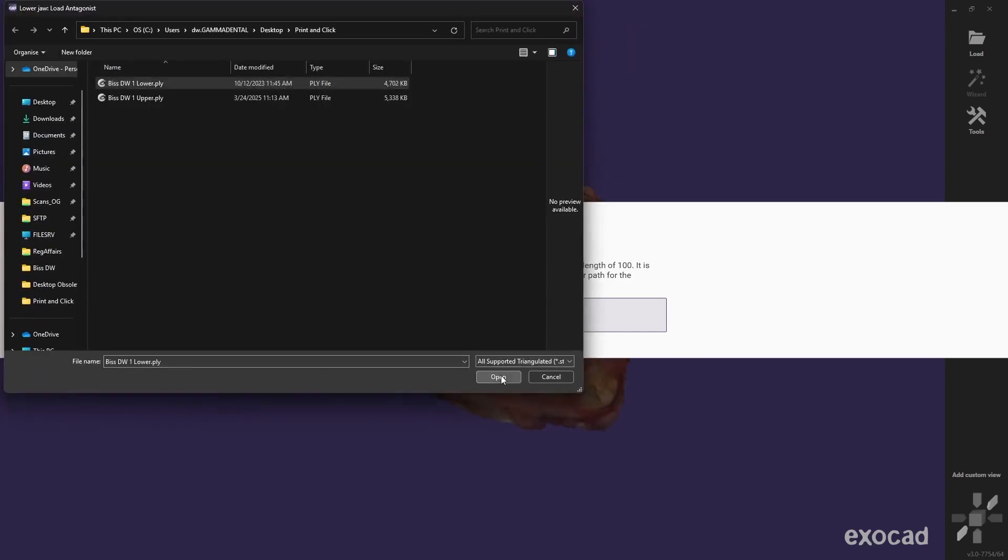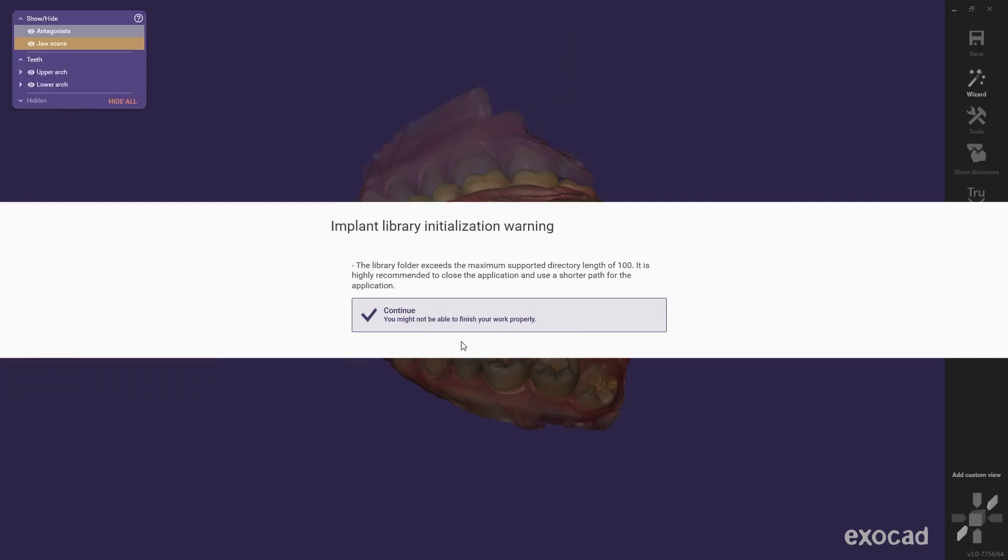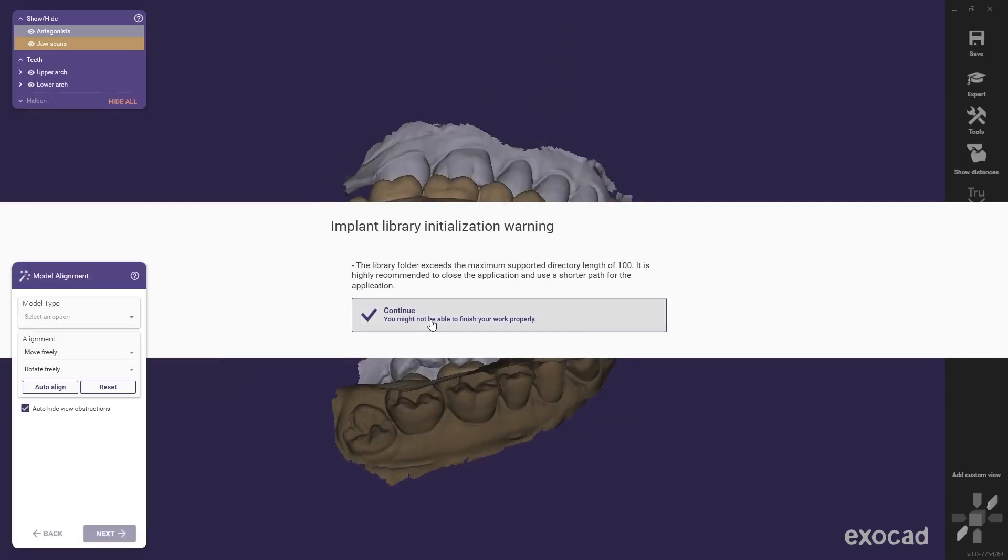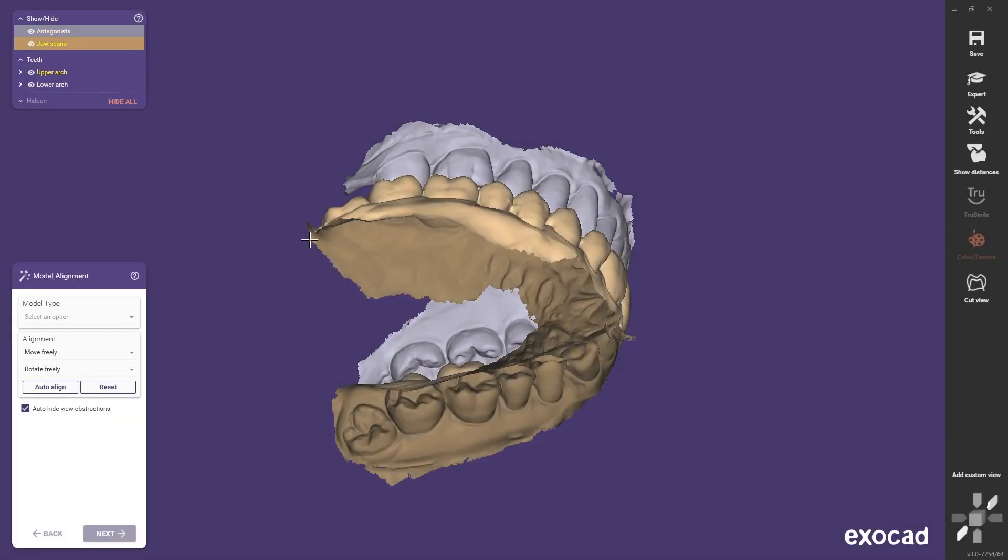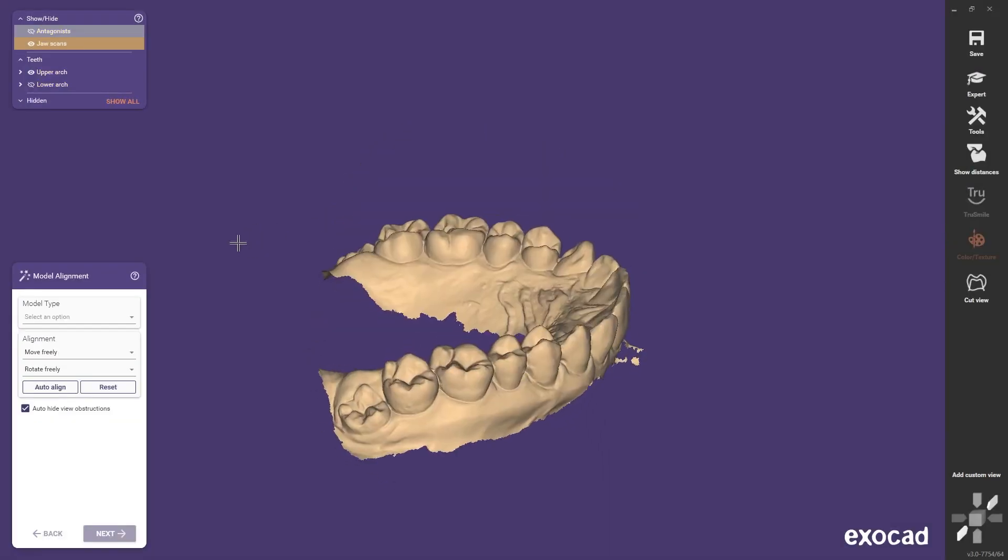After loading upper and lower jaw, follow the workflow. Cut away as many unnecessary parts as possible to reduce resin usage.